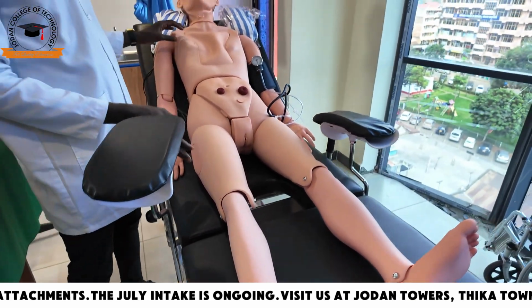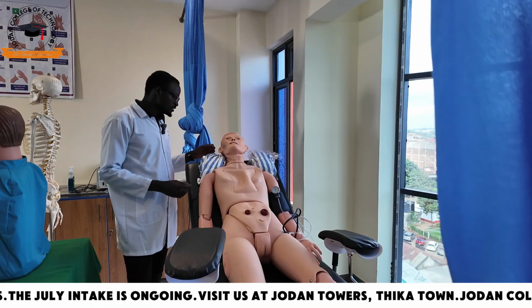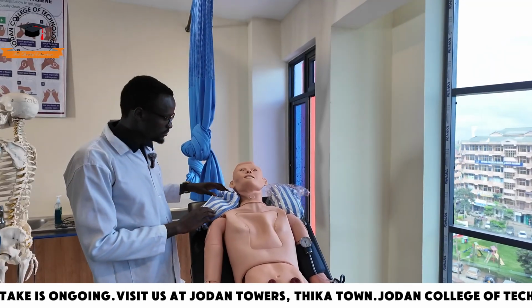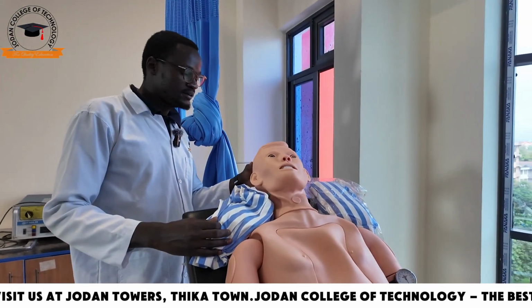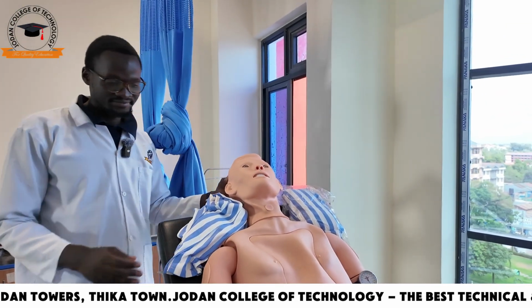You can also use this model to demonstrate how to position a patient. And you can also use this model to perform how to dress an adult who is bedridden or is unconscious. You can also use this model to perform combing and other hygiene to the head.